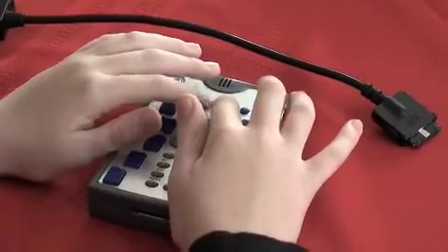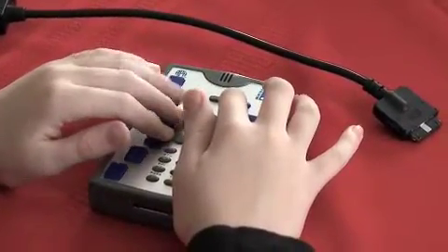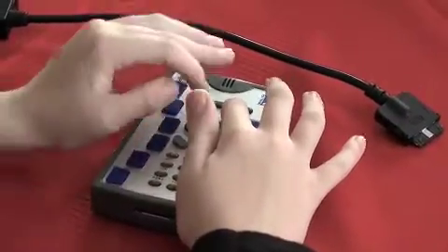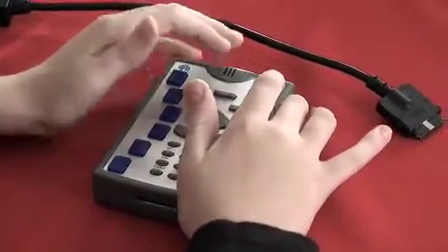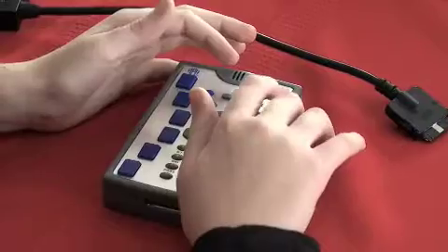The next key is Help. Help is a very useful key, especially if you're new to the Braille Plus. If you press it once. Opening Help. It says Opening Help, and it's actually opening the Braille Plus User's Manual.